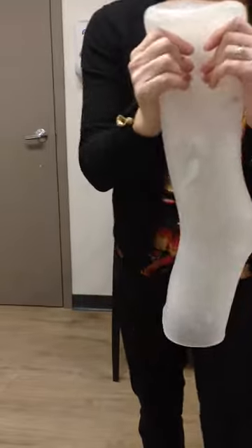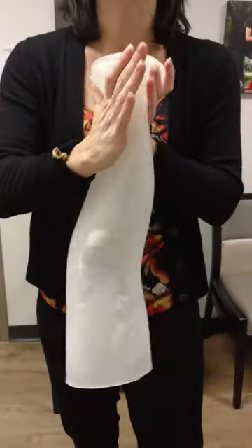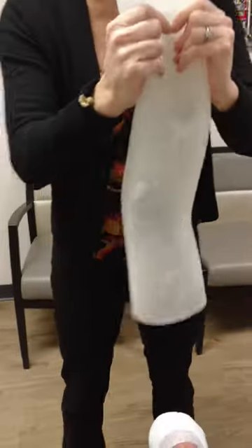You still hold it to put it on — you still hold it. It has a front and back. The lotion is on the outside, right? Because this doesn't have a fabric cover, it has to have something so it slides on itself. So you can get it on.